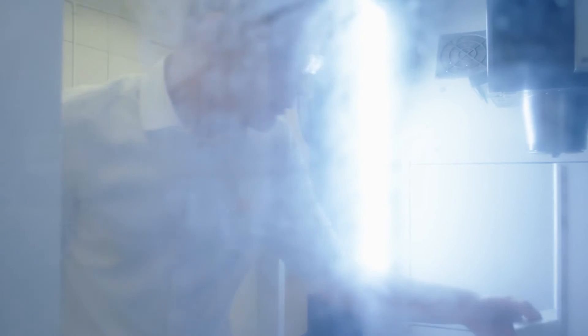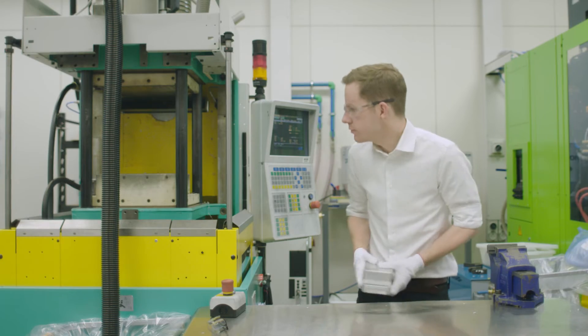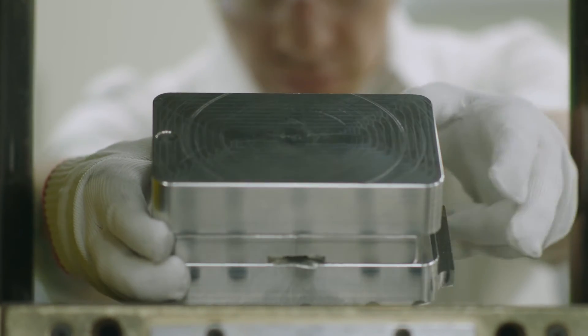As a design engineer, it's great to work at a place like this that has really world-class facilities—all our labs, our prototyping, our CNC machines, molding—because we can really test the design down to its core very quickly. This allows us to fail very quickly and iterate very quickly, which allows us to improve quickly and get to a final product that is the best for the patient.